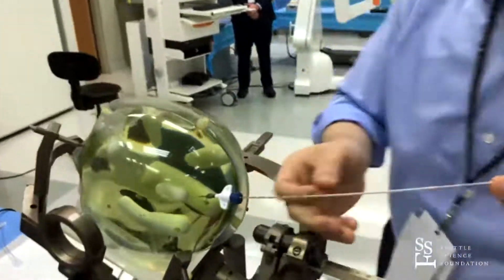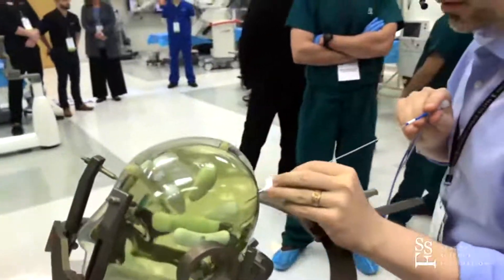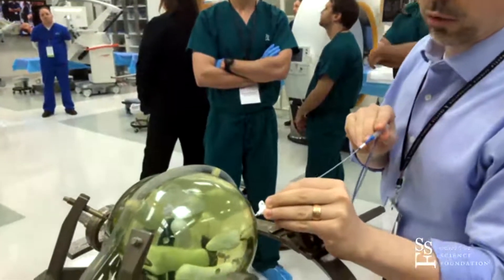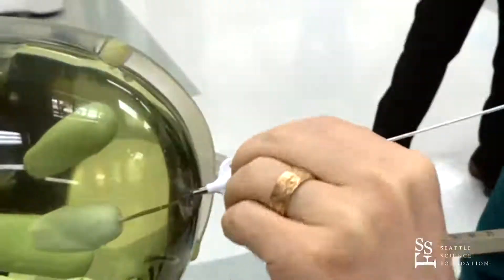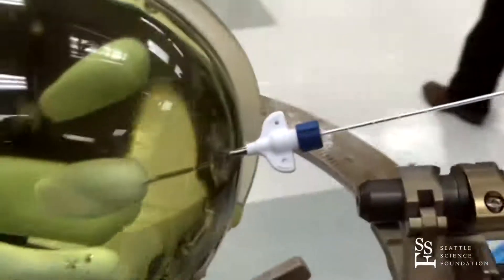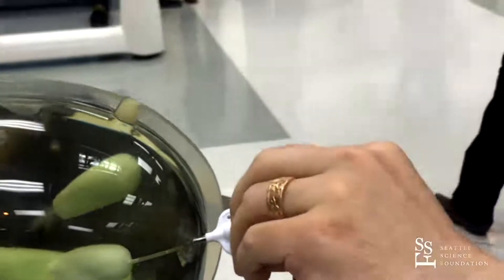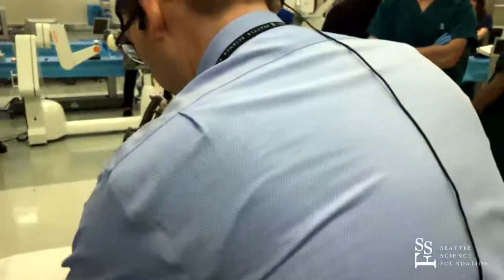We're actually going into a little marshmallow inside the silastic — that's our pretend hippocampus. We can take out the aligning rod; this is held securely in place. And then we have the laser fiber itself, which we have pre-measured.